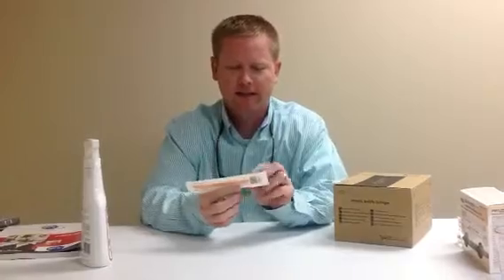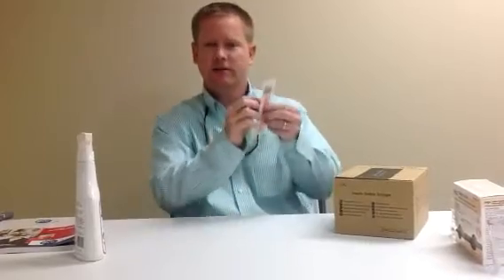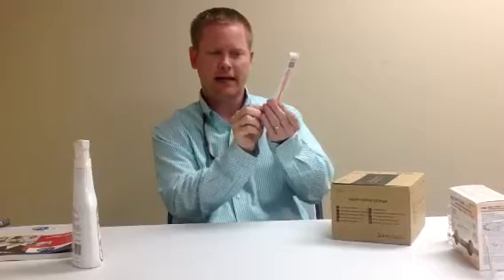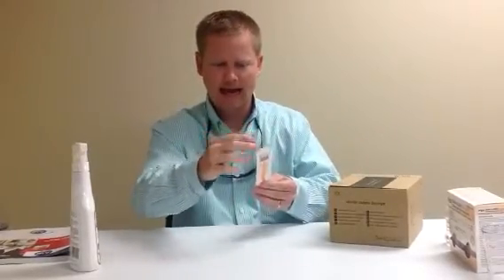What's different about this syringe is instead of having a cap to go over the top of the needle whenever you get done using it, you actually can suck the needle. Once you get all the medicine or what have you inside of the needle out, you can push it in and it'll click. Then you suck that needle back in to the syringe. That way there's no access hanging out.